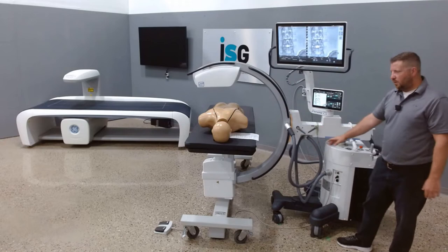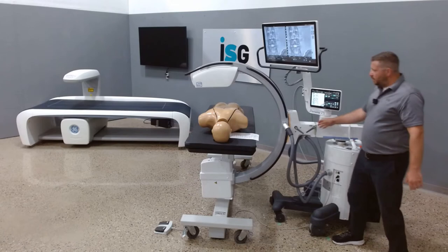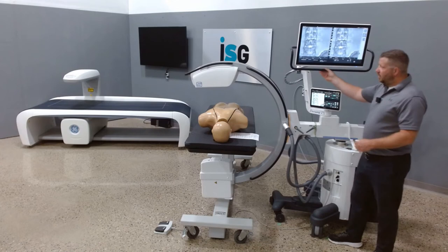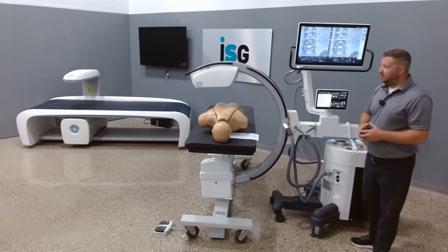683 total pounds of the system can be maneuvered from the rear of the system, in and out, all with one hand. All other C-Arm wigwag rotation brakes are color-coded for movement. Very easy-to-use workflow — one button system operation. When the system boots up, you can select what exam you want to use and it presets the KV and MA, and you're ready to take a shot.